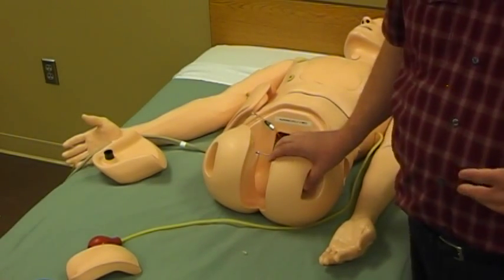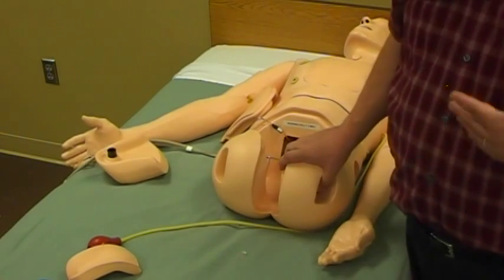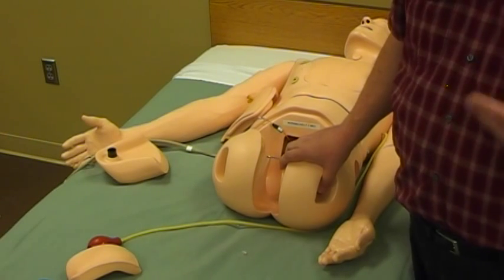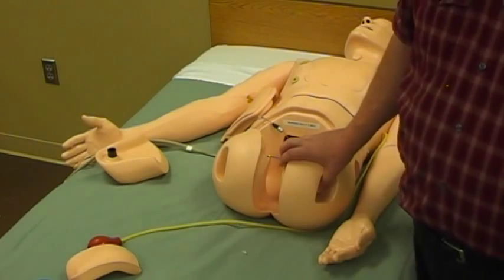We already have units on site. What we're doing is upgrading so that you have SIM pads, because some of you have units that are either too old to continue servicing, or you just don't have any at all.